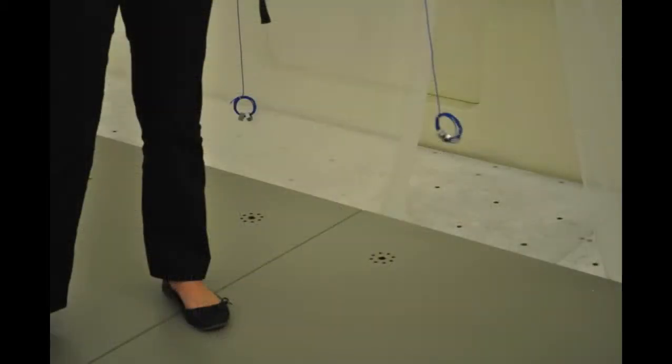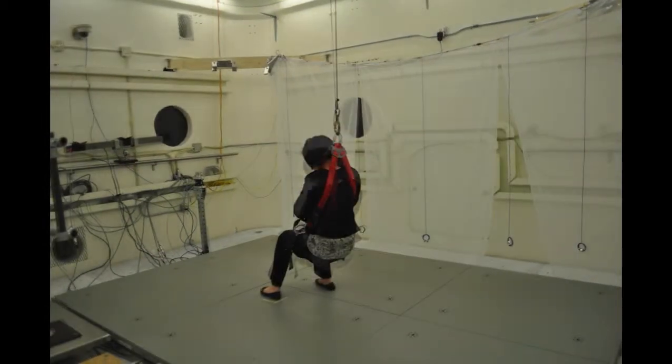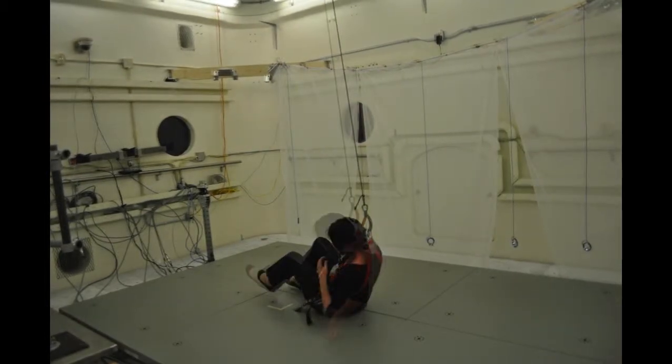STAIR Lab is on the motion platform right now, and what that means is we can start to change the incline. There's a very sophisticated safety harness system which prevents falls or injury as we conduct this research.